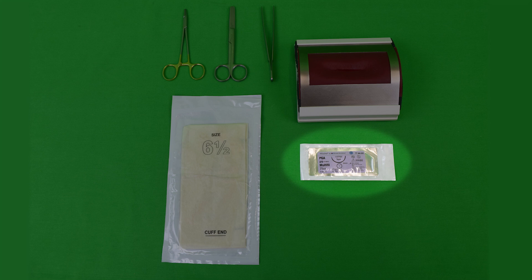Therefore, an atraumatic needle is better suited for finer and more fragile tissue, such as internal organs, blood vessels, or the skin.